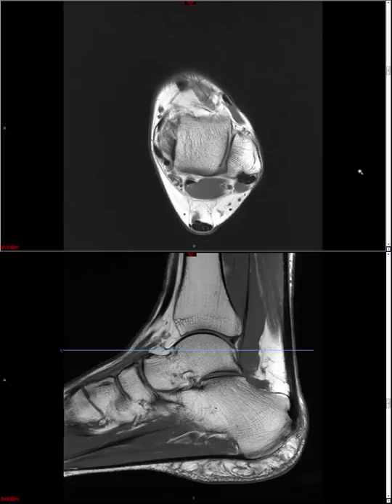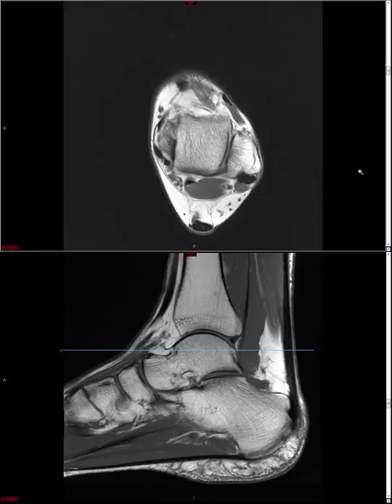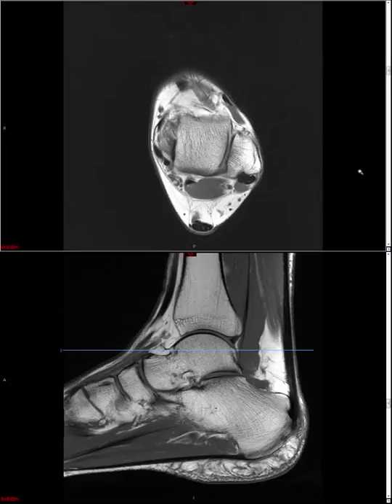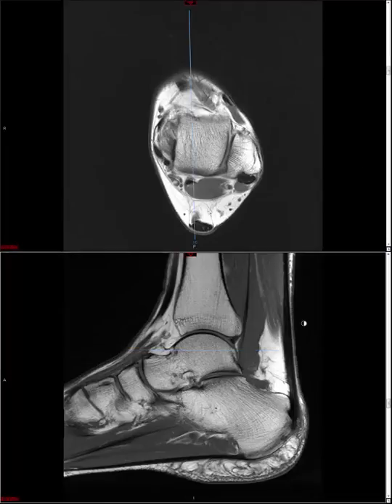Hello, my name is Walter Mack, and today we will be discussing a basic approach to MRI of the ankle. This discussion will be fairly light on pathology and more focused on just the mechanics of going through a study and how we go about doing image interpretation.